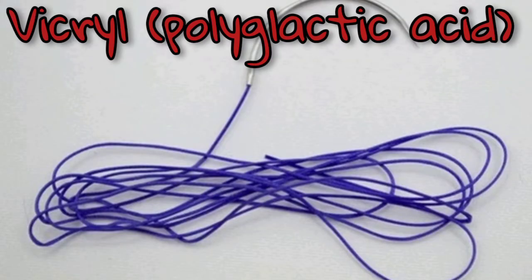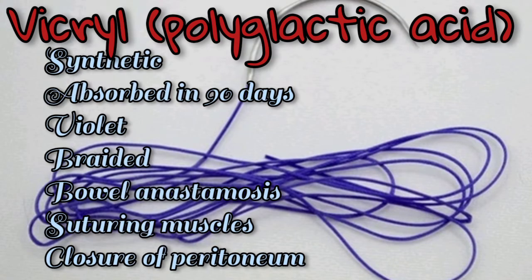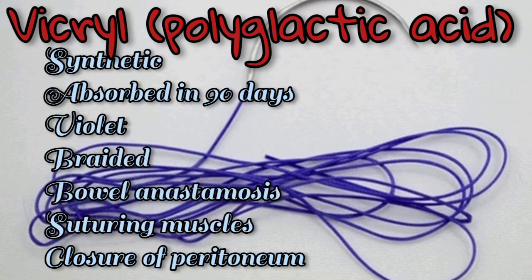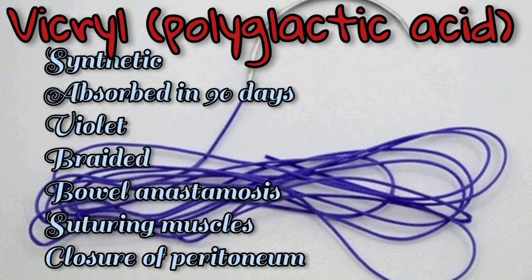Vicryl, or polyglactic acid, is a synthetic suture material absorbed in 90 days. It is violet and braided, used for bowel anastomosis, suturing muscles, and also in closure of peritoneum.